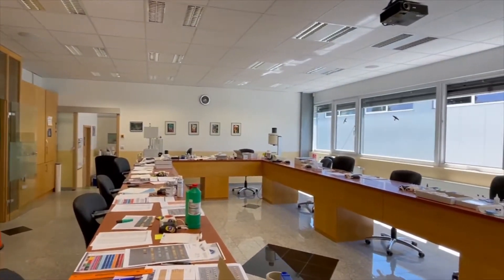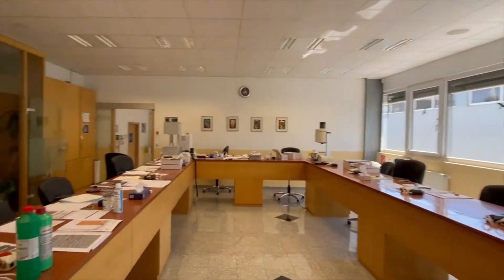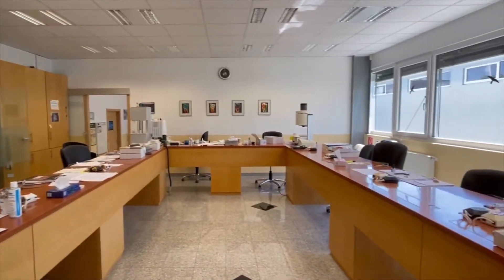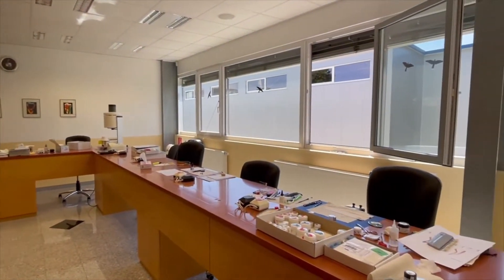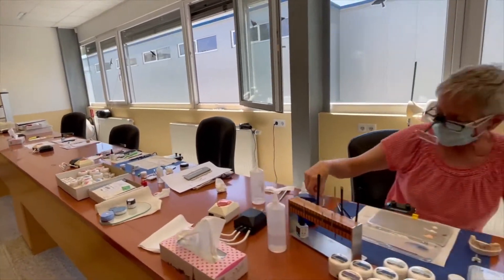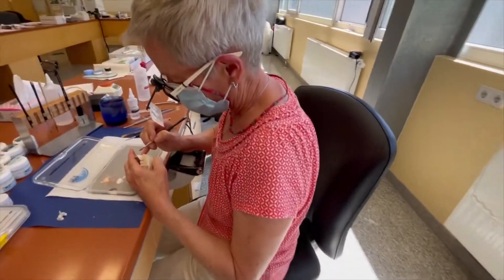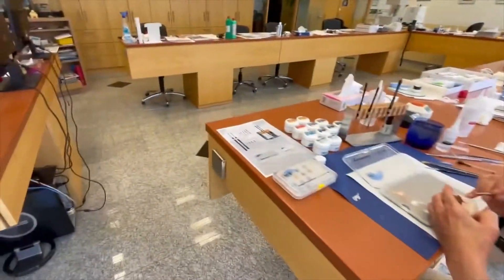Please take a small view through our training center. We have space for 12 people and we can train every day — individually or in any format you like. Now we are back at the ceramic place.